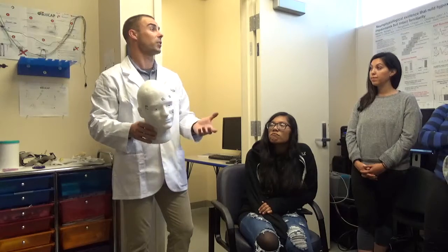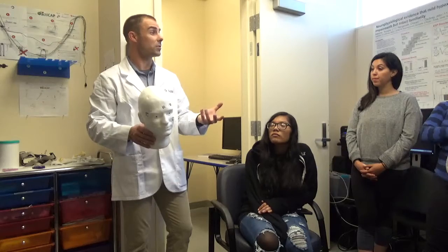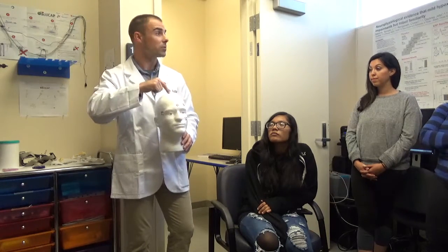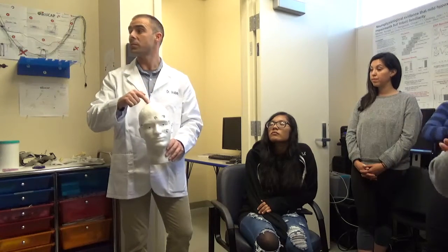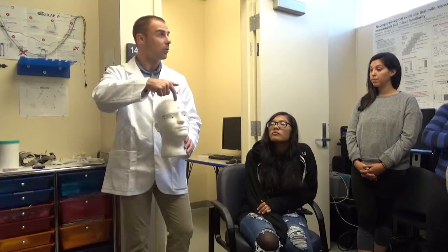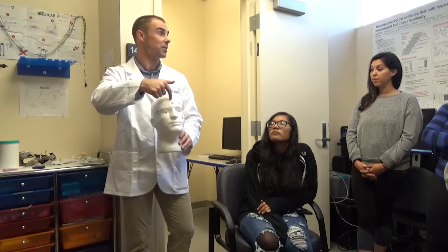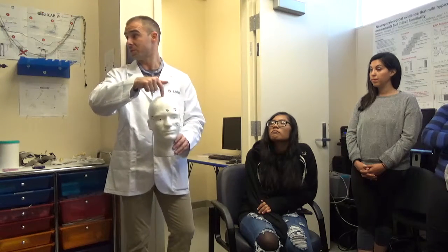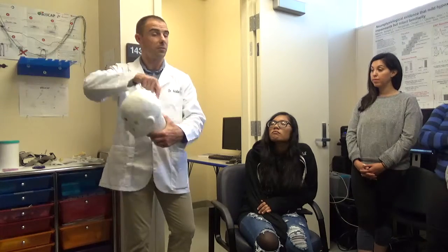Now, because we have lots of electrodes, we tend to have lots of names, or at least labels for their locations. So sometimes it's not just frontal or central. Sometimes it might be frontocentral. So it's not F or C, but it would be FC. Now, you would have a 0 number along our midline. So that would be Fz, Cz for central, Pz for parietal, and Oz for occipital.